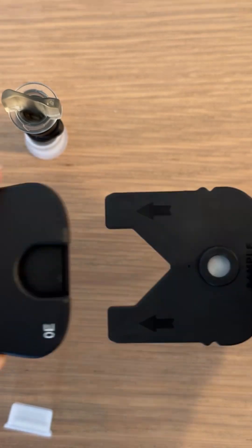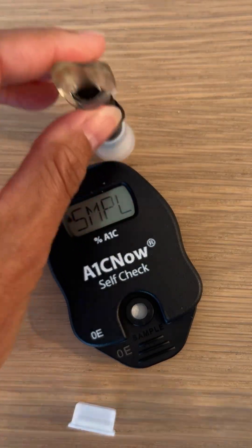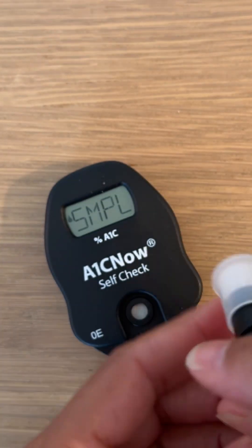You then want this simple little machine here. These two ends go together. It starts up, and then you want to apply the sample — shake it a bit more, then take off the end.